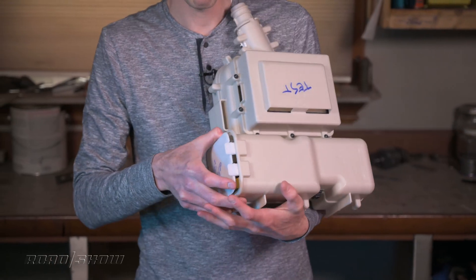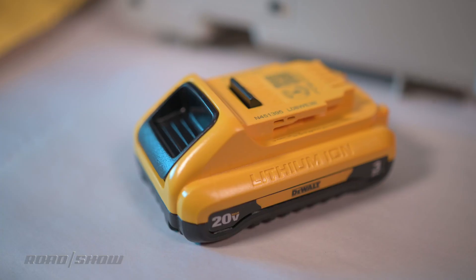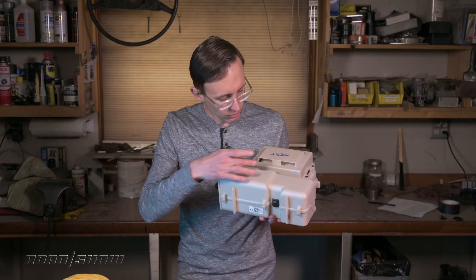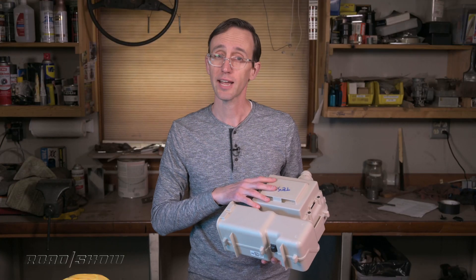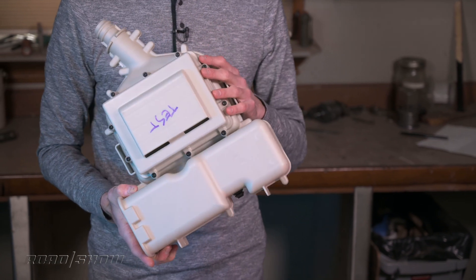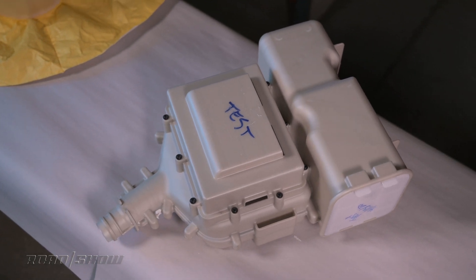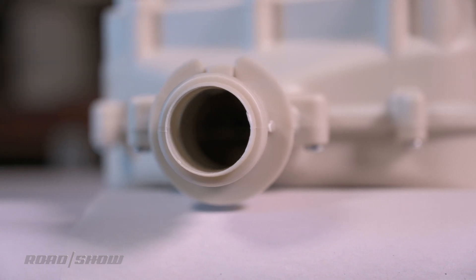So inside, if I pop this small door off, you'll see there's actually a little battery from a power tool, and this lasts about eight hours between recharges. Beyond that, you can't really see it through these gills, but that's where the all-important HEPA filter is, which keeps those nasty viruses out. And inside here there's a blower fan, which sucks air through the filter and up through the tube. That's actually based on a design that you would have in a ventilated car seat, similar to what you might have in a Ford F-150 truck.